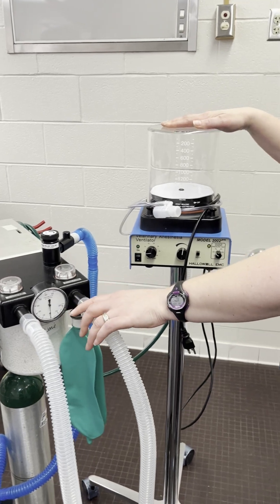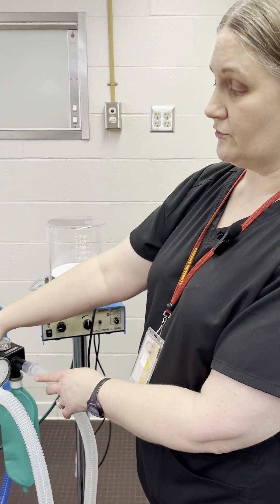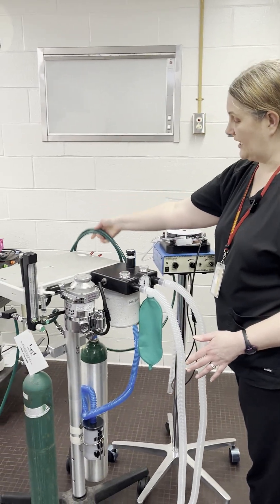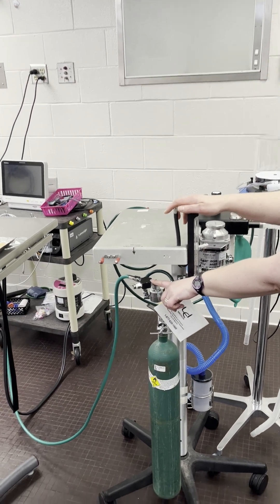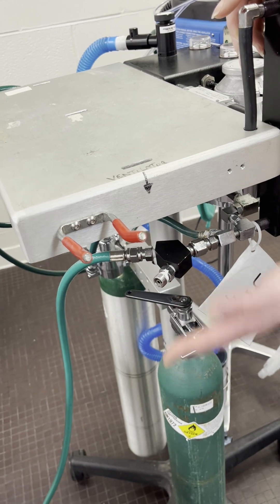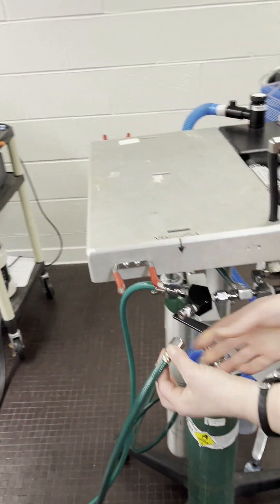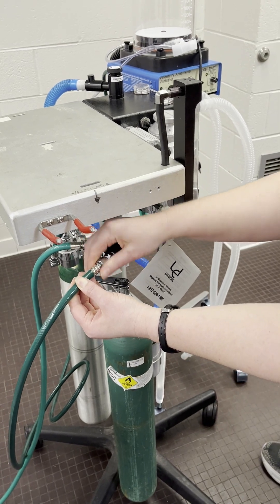The Hallowell ventilator requires its own oxygen source. So in addition to the oxygen source for the anesthesia machine, the Hallowell ventilator has its own oxygen setup as well. In order to attach that, you need this Y splitter that allows the oxygen to come into the anesthesia machine and also allows the oxygen hose for the Hallowell to be attached. It's just a simple DISS connection — attach it just like that.